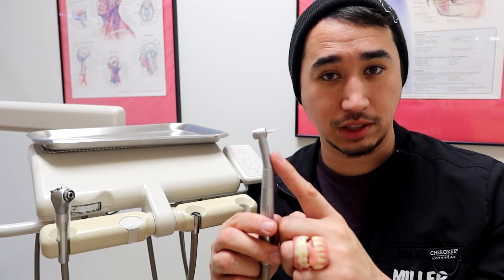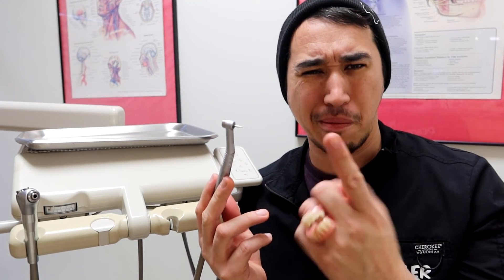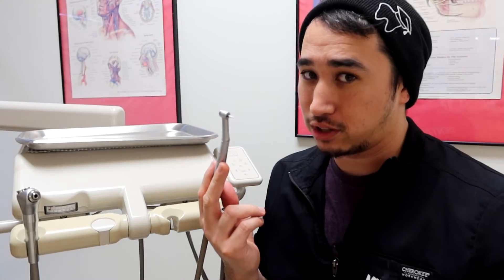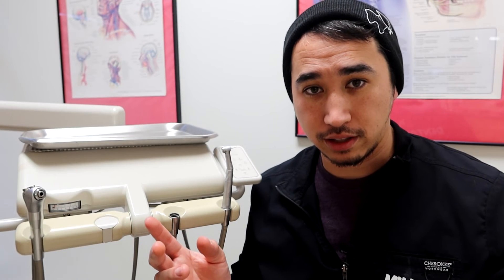The water coming out of high speed handpieces can be turned off via a rheostat switch. A common troubleshooting scenario: if you step on the rheostat and nothing comes out of your handpiece but a neighboring hose is shooting water, that means your handpiece has been sitting in the wrong cradle. Simply lift it and return it to its correct cradle, then give it a spin and you should have movement.